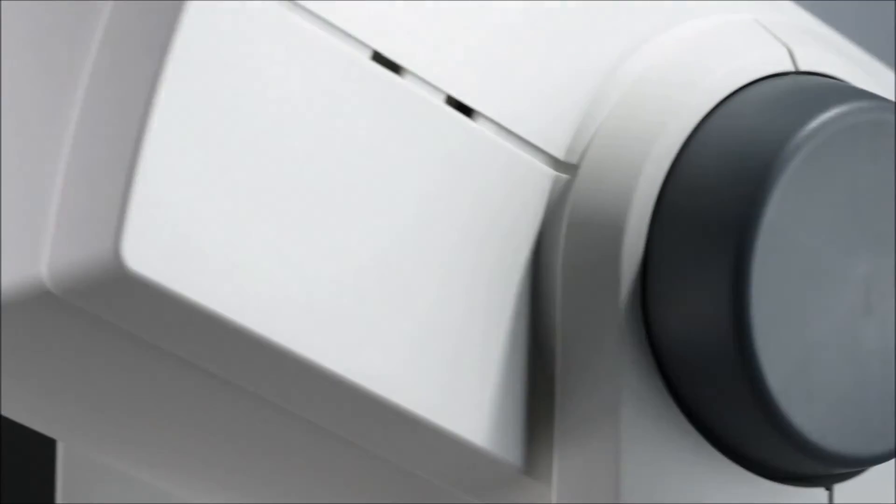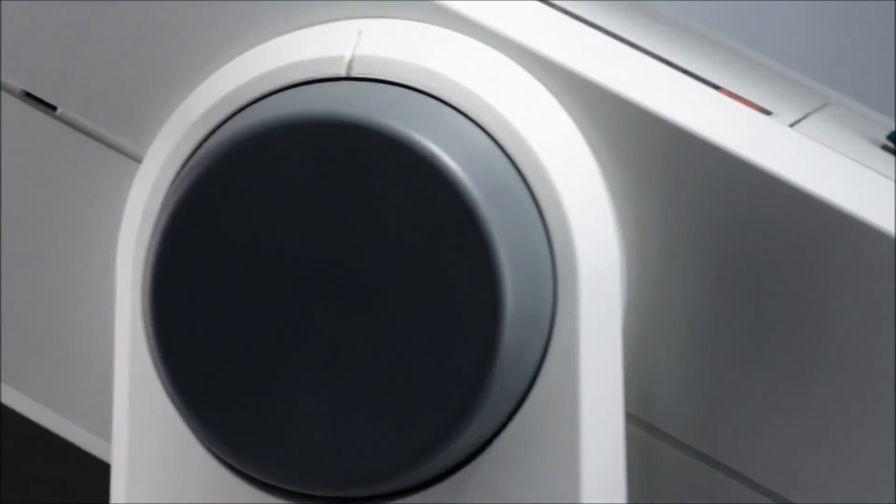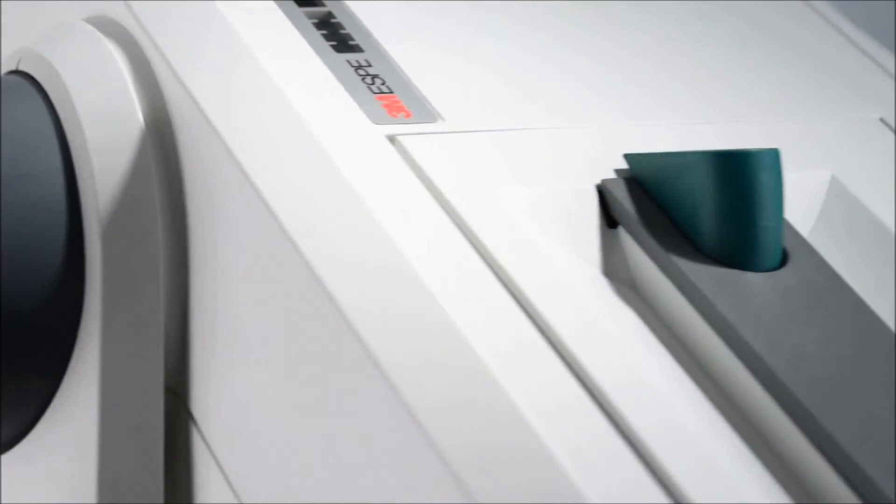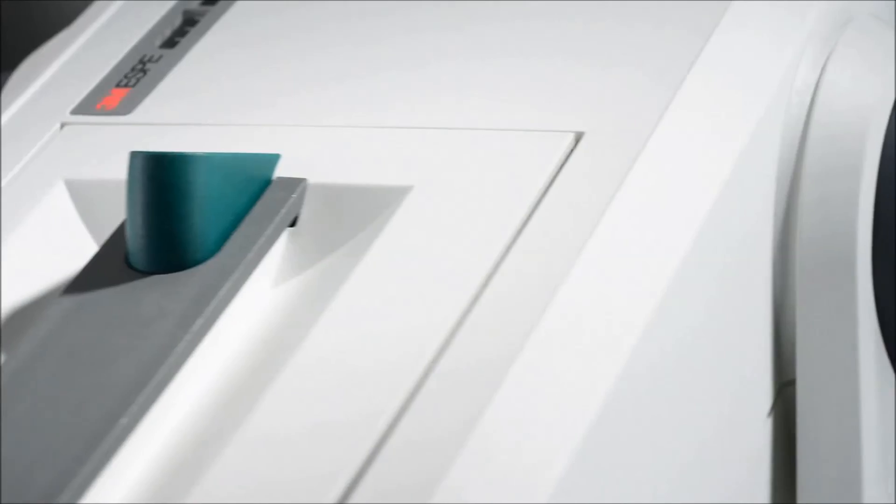The Pentamix light mixing unit works with all 3M ESPE impression materials: polyether, VPS, and alginate replacement materials. The Pentamix system puts you in control of the impression procedure and adds speed, precision, and convenience to your impression work.